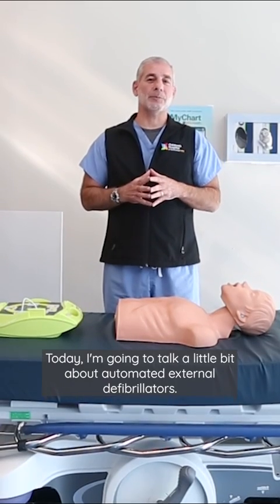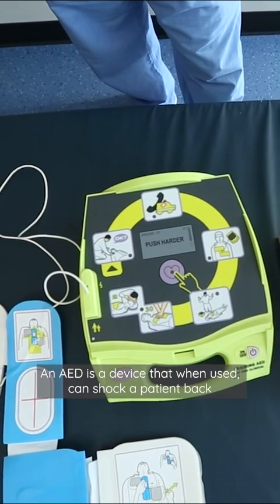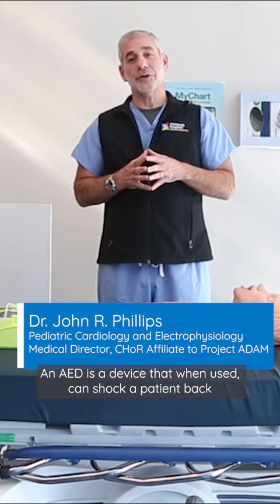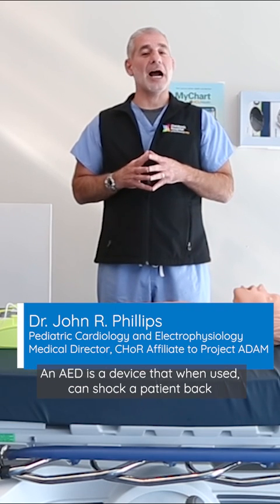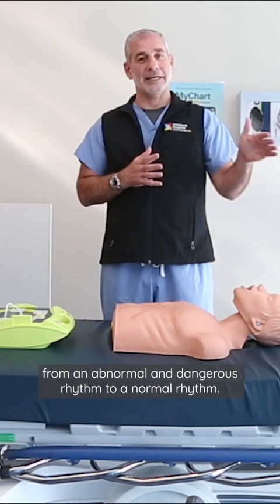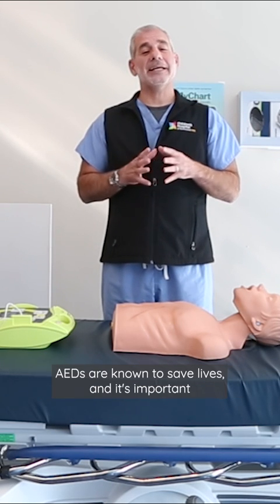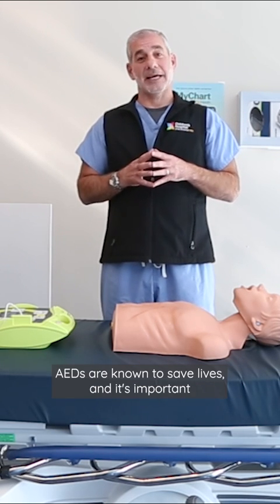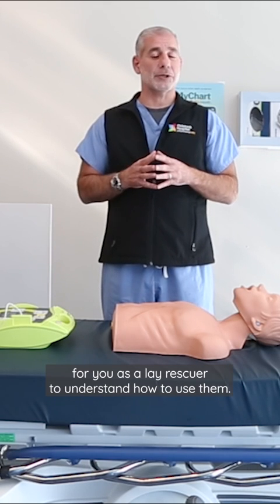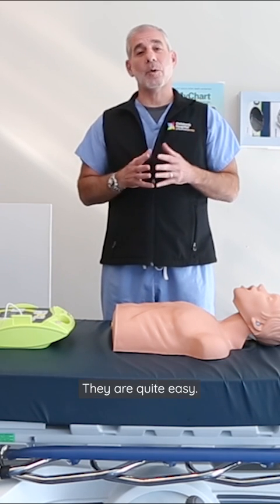Today I'm going to talk a little bit about automated external defibrillators. An AED is a device that when used can shock a patient back from an abnormal and dangerous rhythm to a normal rhythm. AEDs are known to save lives, and it's important for you as a lay rescuer to understand how to use them. They are quite easy.